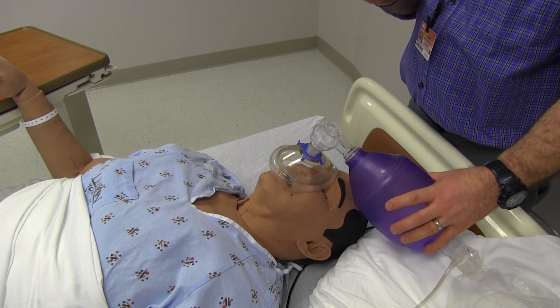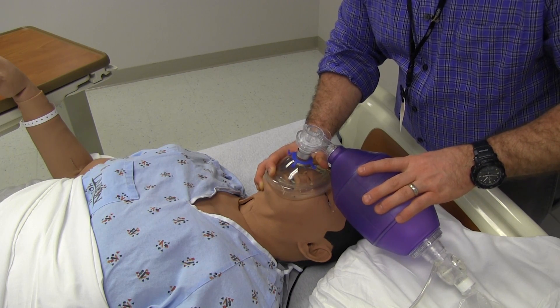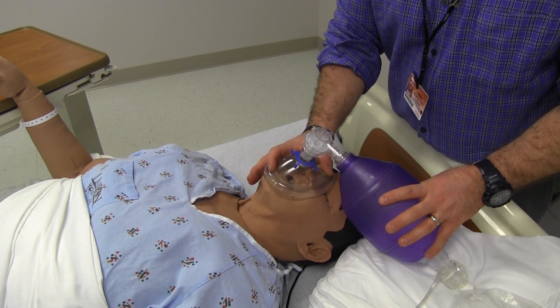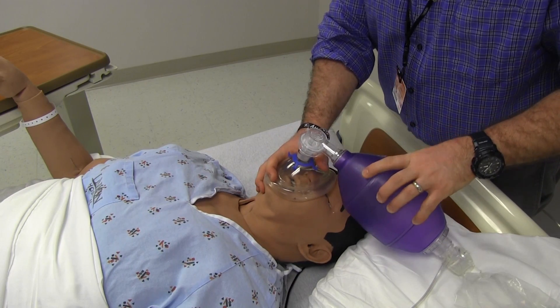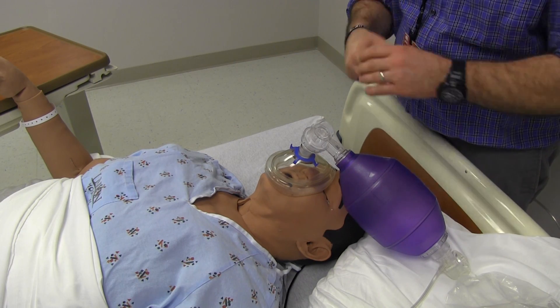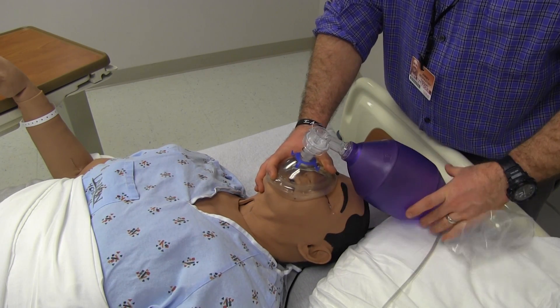Remember with our breaths: the best method is one breath every six seconds, ten breaths per minute. That's a long time — seal it on, one, two, three, four, five, six. What I was initially taught was to breathe with how you're breathing, but here's the problem: at my first code I was breathing pretty fast because I had to run and my adrenaline was pumping. Hyperventilation is highly discouraged during any type of code — you increase intrathoracic pressure and can't get a good squeeze on the heart with CPR. Keep your breaths slow. If you're not sure about breathing rate, go with ten breaths per minute, a breath every six seconds, and you'll be in the correct range.